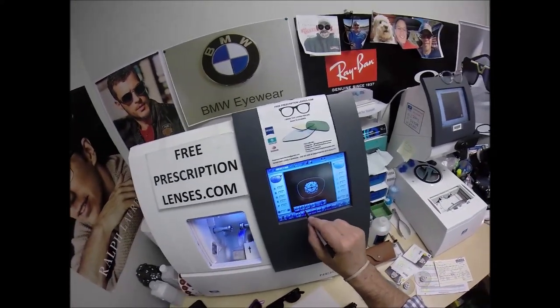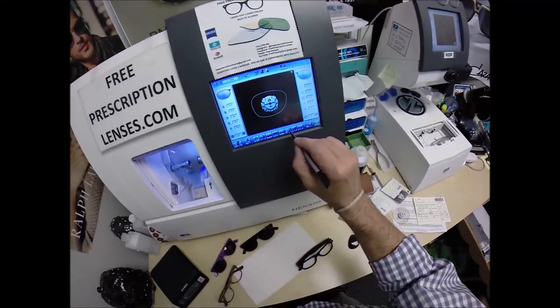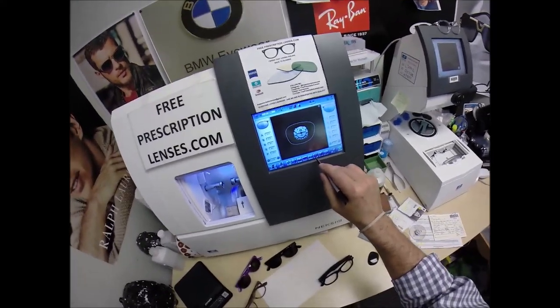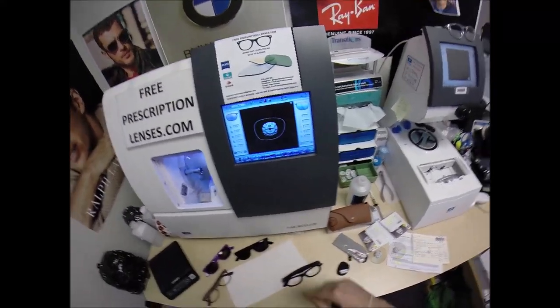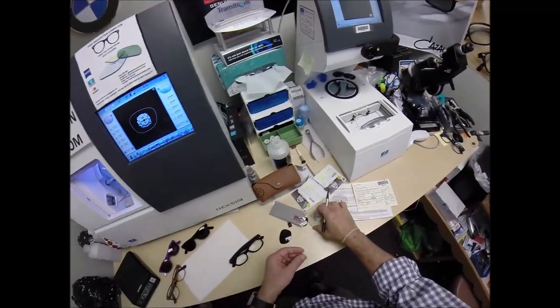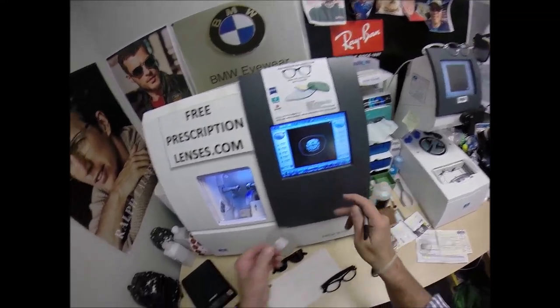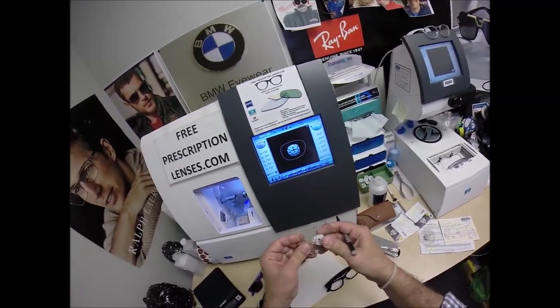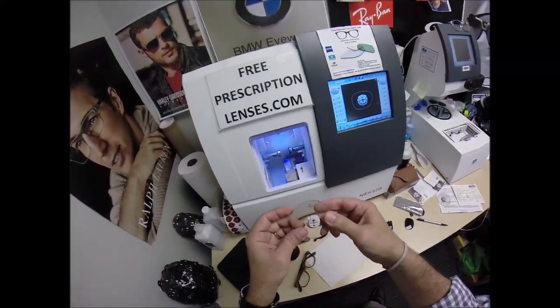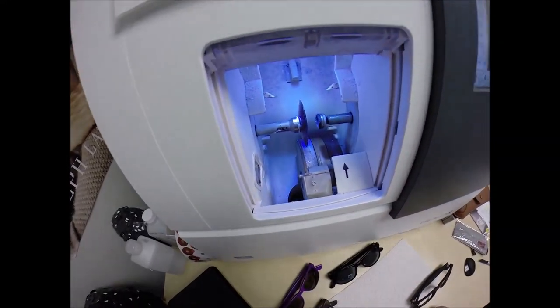These are polycarbonate lenses. I'm not going to polish the edge of the lens — I have to turn that off on every single job. I'm not going to put a safety bevel on the front convex surface of the lens, only on the rear concave surface. I'm going to place the magnet on there firmly, press the sticker on there. Now the magnet's going to do its job a second time — it's going to attach itself to another magnet there in the chuck.